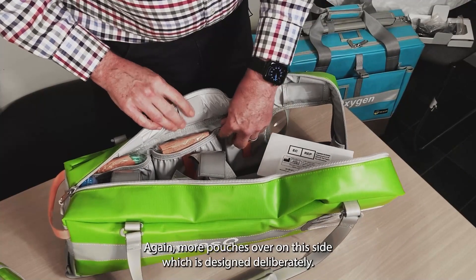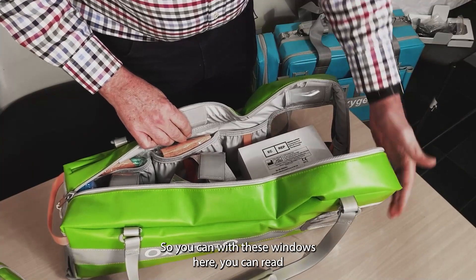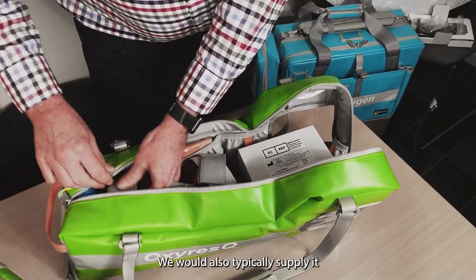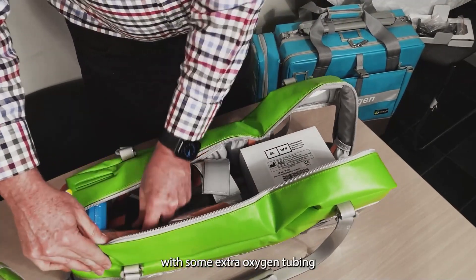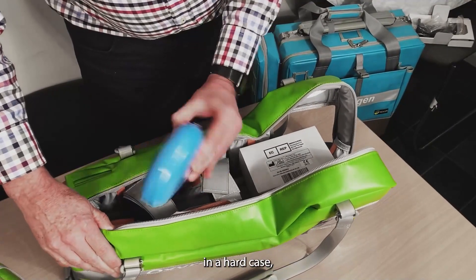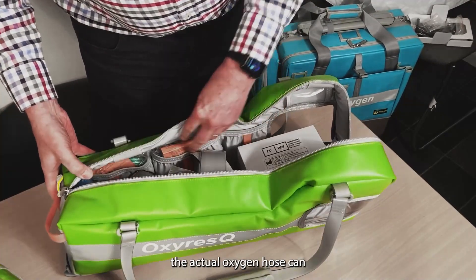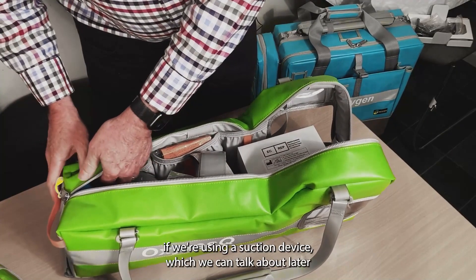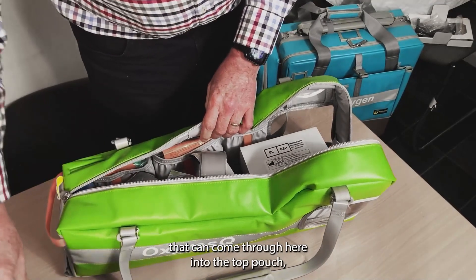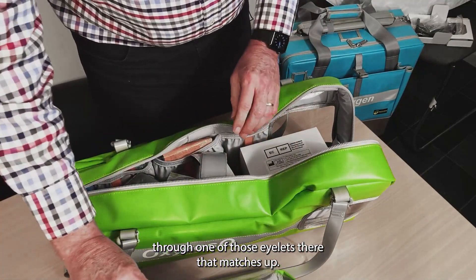There are more pouches on this side as well. We designed it so that through these windows, you can actually read the oxygen pressure without having to open the bag. We'd also typically supply it with extra oxygen tubing and a CPR mask in a hard case. The oxygen hose can, if using a suction device, come through the top pouch via one of those eyelets.